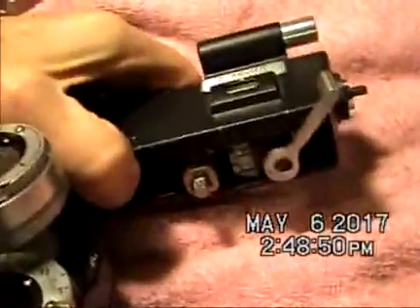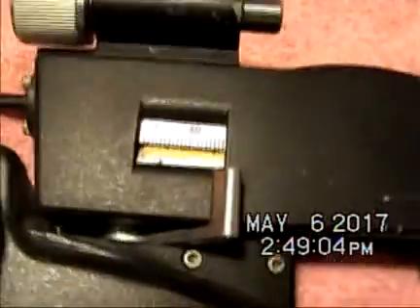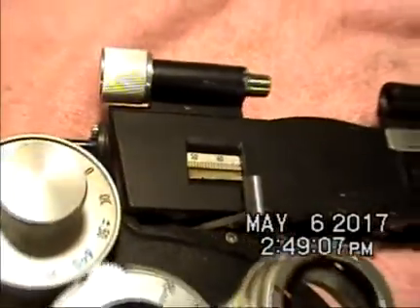Let's see if I can get this apart. But this one is also damaged. It would seem to have much more play than I expect, but might not be an issue. The PD thing is misaligned as well. I've never taken apart this top bracket of the phoropter more than this before. It looks like if I remove these two screws from both ends, then this front bracket just might come loose.